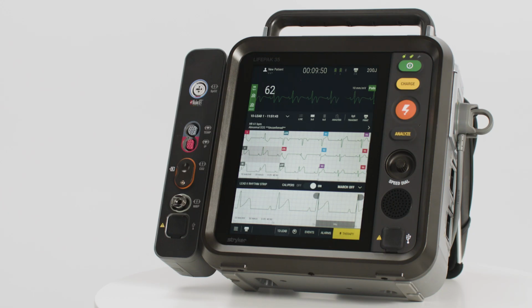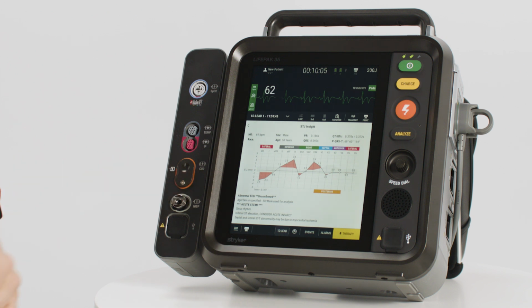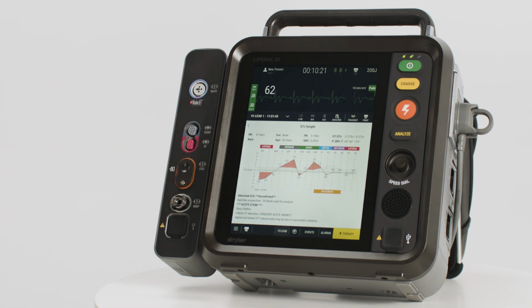To access the STJinsight graph, press the Analysis button at the top of the 12-lead window. This provides a graphical representation of the patient's STJ measurements in comparison to the normal range of ST segments based on the patient's sex and age. The gray band across the middle of the graph represents the normal STJ levels based on the patient's sex and age. The ECG leads are arranged in anatomical order along the x-axis of the graph.